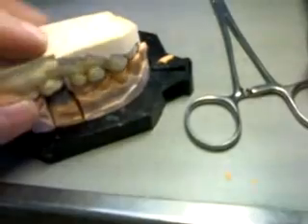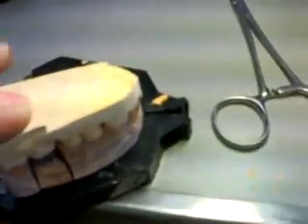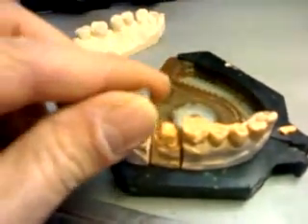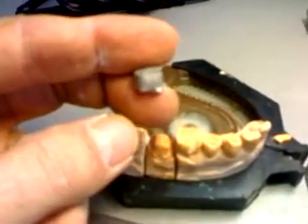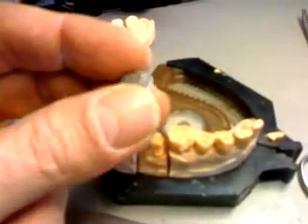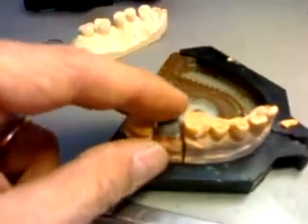I begin to look at how much room I will have for porcelain in a contour context, and I also start getting an idea of occlusion and the spaces left for it. On the basis of all this information I will know what spaces to create and where — and of course this comes with experience. What you want to be really careful about is that these structures are already thin, so you must not go too heavy on them, because if you put a hole you have to start the job all over.